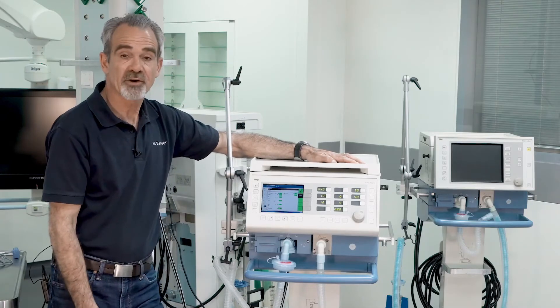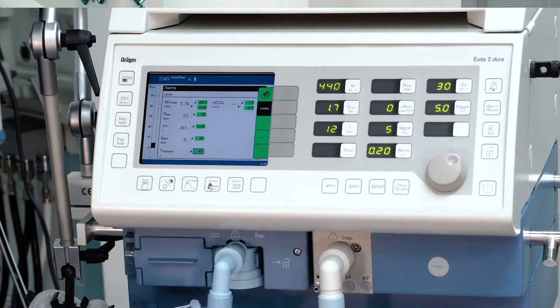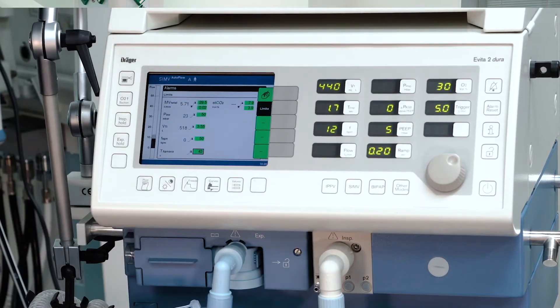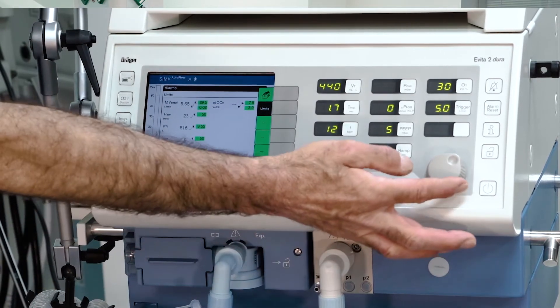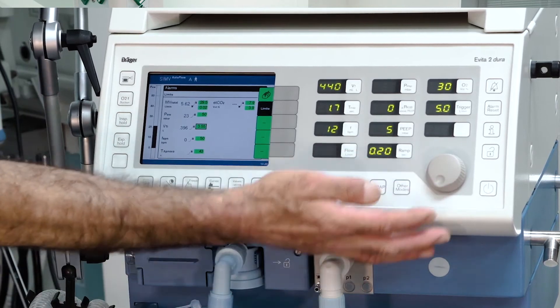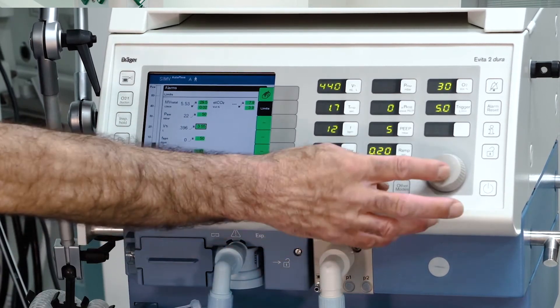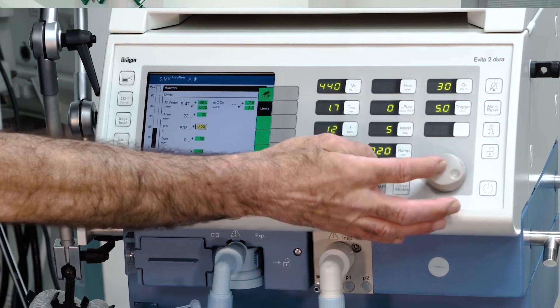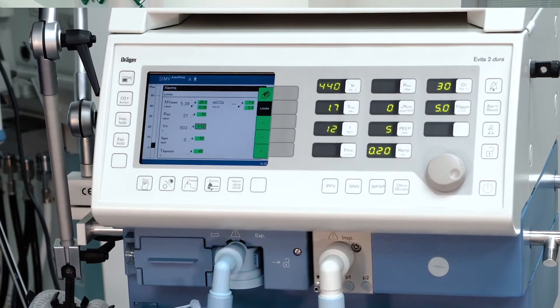Take care of your alarm limits. Select 'limits' and now you can adapt your alarm limits by selecting the value, confirming, changing, and confirming again.